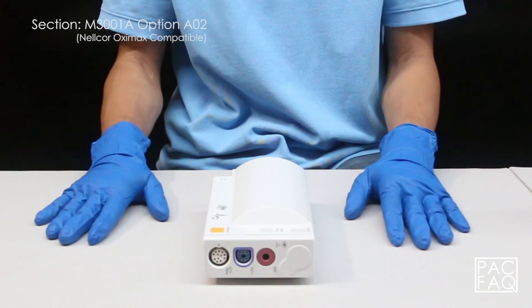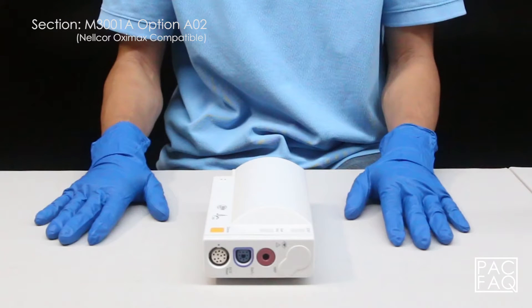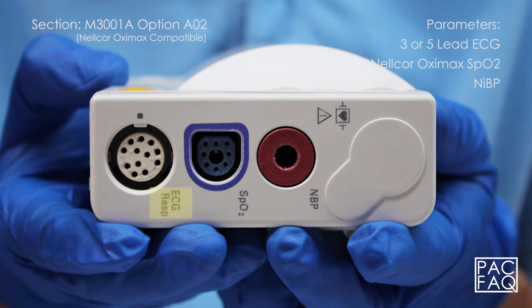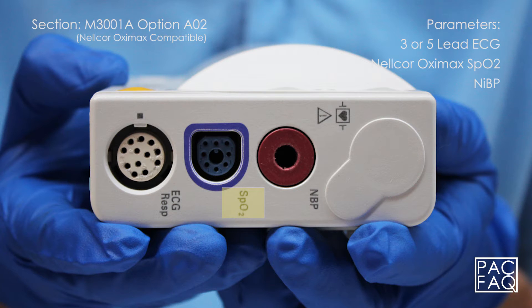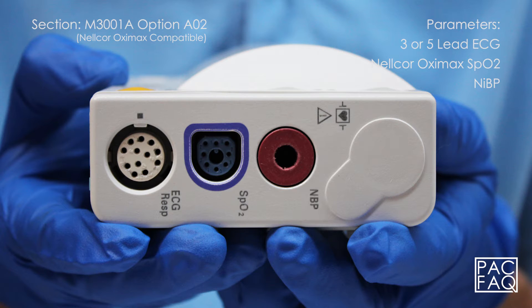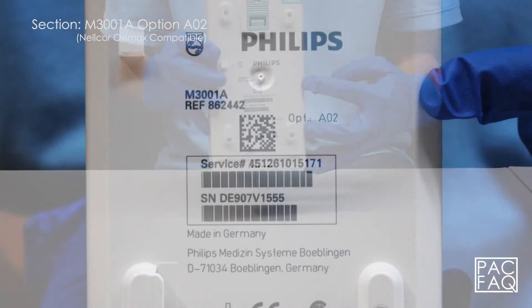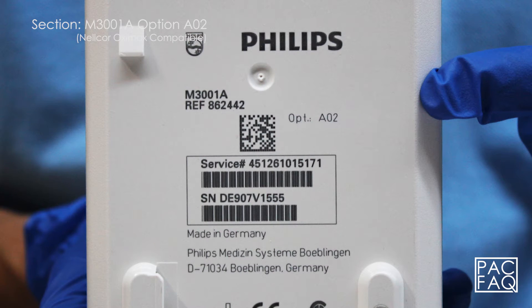Here we have option A02 standard. This unit comes with parameters 3 or 5 lead ECG, Nellcor OxyMax SPO2, and non-invasive blood pressure. The product identification and serial numbers are located on the bottom of the unit.